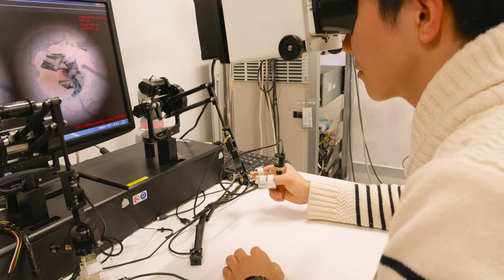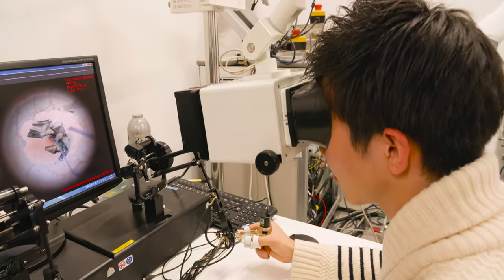We use virtual reality simulators to study new robotic controls because it's efficient, and we don't want to risk the expensive equipment.